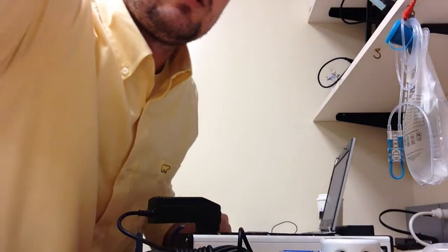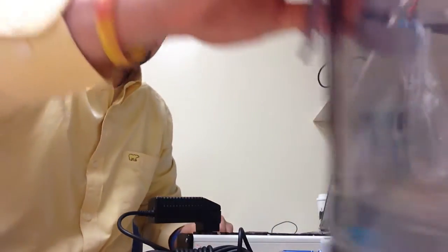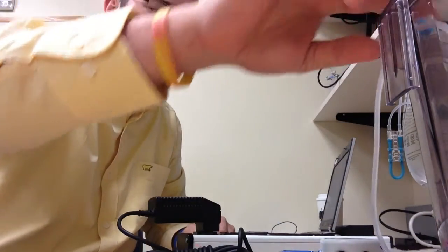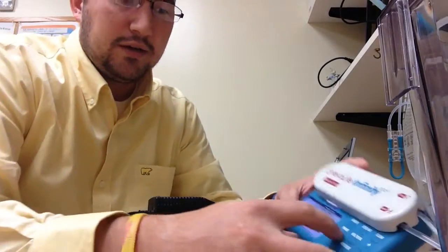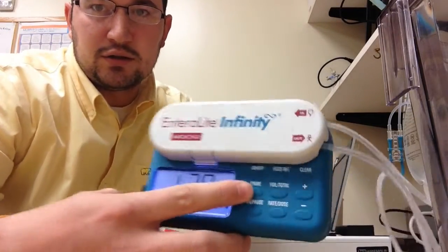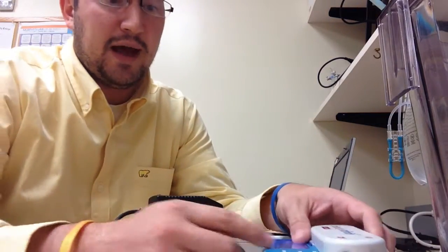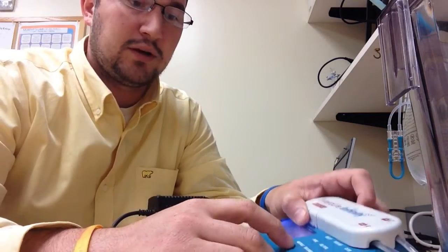It's good to use like a bucket or a beaker to run your fluid into. And so what we're going to do is, if it's a new bag, you can use the prime button here to prime your bag. This bag's already been primed, so I'm going to go ahead and hit run.